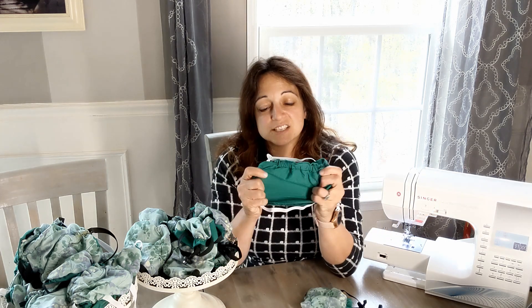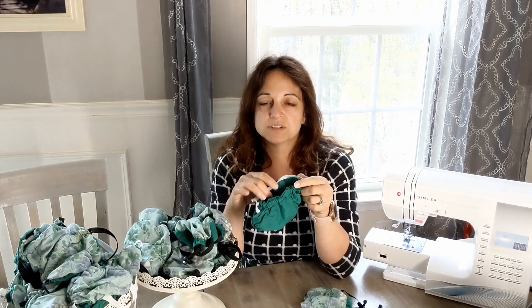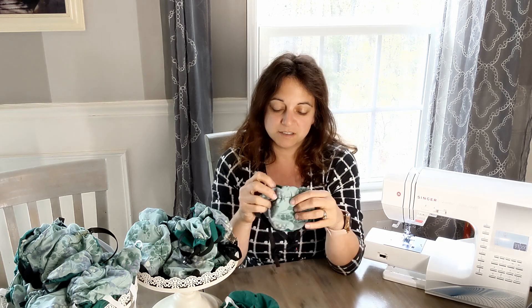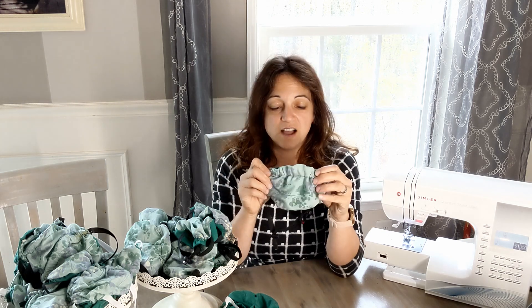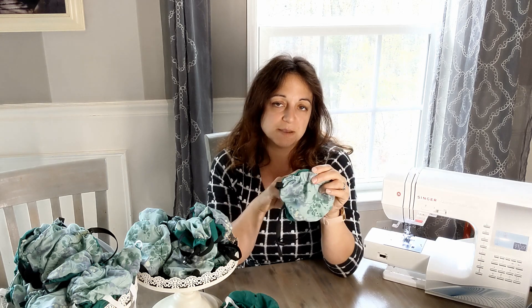These are two prototypes that I made. I made this one first and then made some design improvements and started making this one. Both of these masks passed a fit test on me. This one is a six-by-nine shape that with the elastic bunches down into a little purse shape, with a filter pocket inside. This one is a little bit rounder but the same idea, and it has adjustable toggles so you can adjust the fit. I like this one better because it's more contoured to my face and adjustable since we all have slightly different shaped faces.